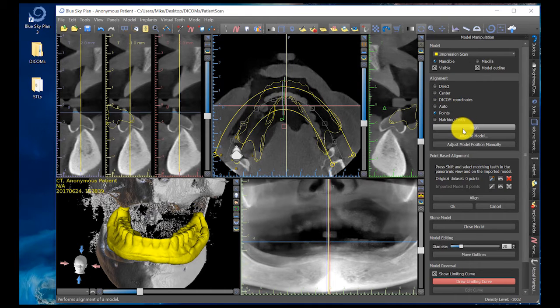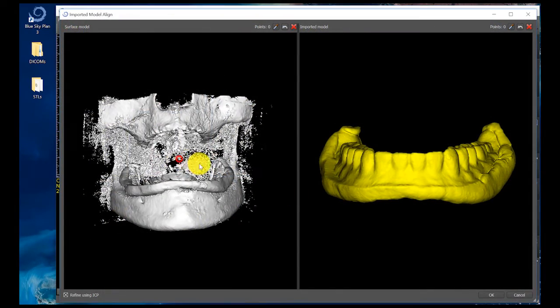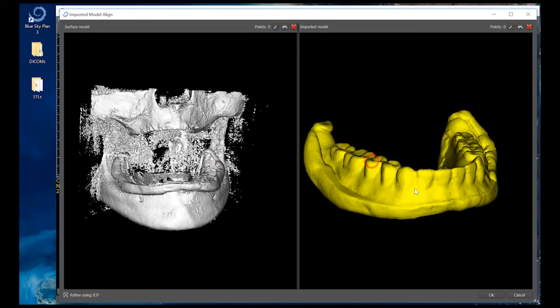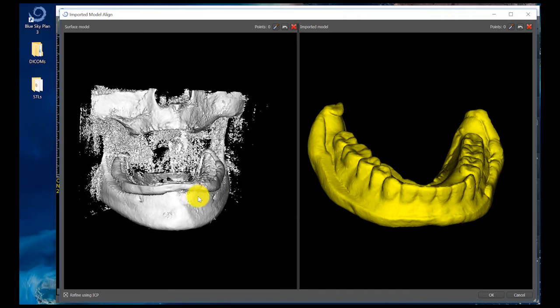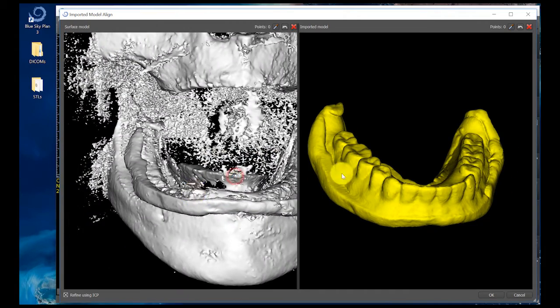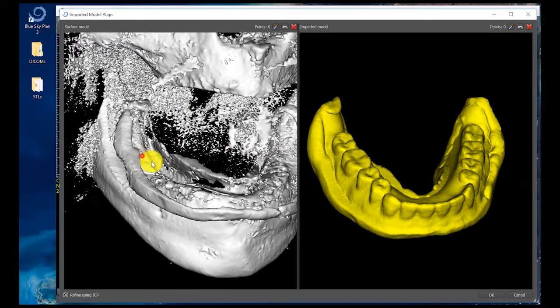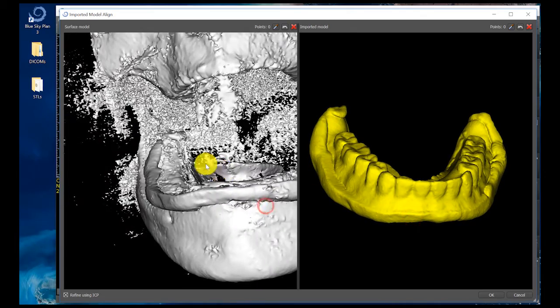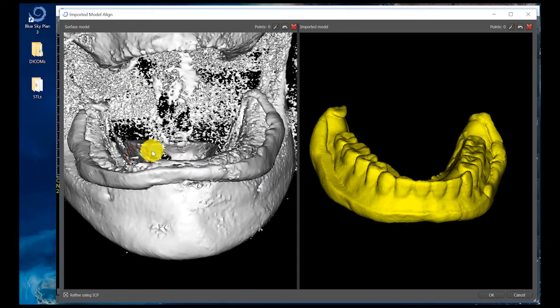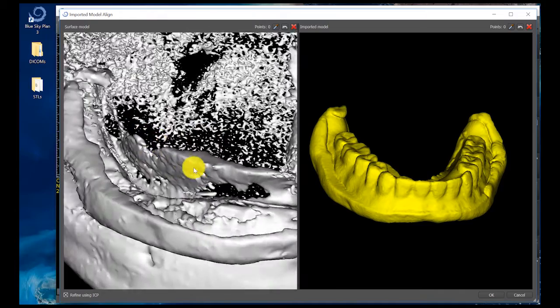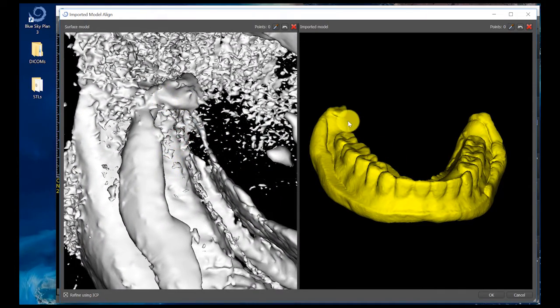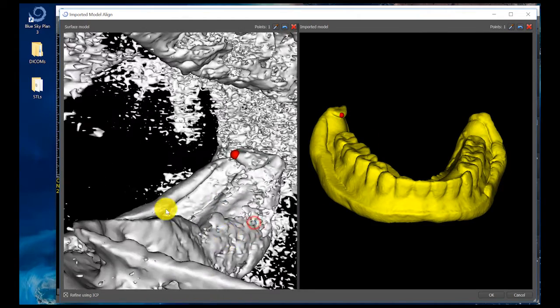Hit the Align button and it's going to generate an alignment function within the software. It's created a rendering of my patient scan on the left and a rendering of the patient's model from the DICOM data of the denture and radio opaque PVS alone. The radio opaque PVS creates little markers visible between both sides of the scan — just like gutta percha or spherical markers like sure mark buttons. Holding the Shift key down and clicking the exact same spot on both sides of the scan allows me to digitally join the two together at those points.